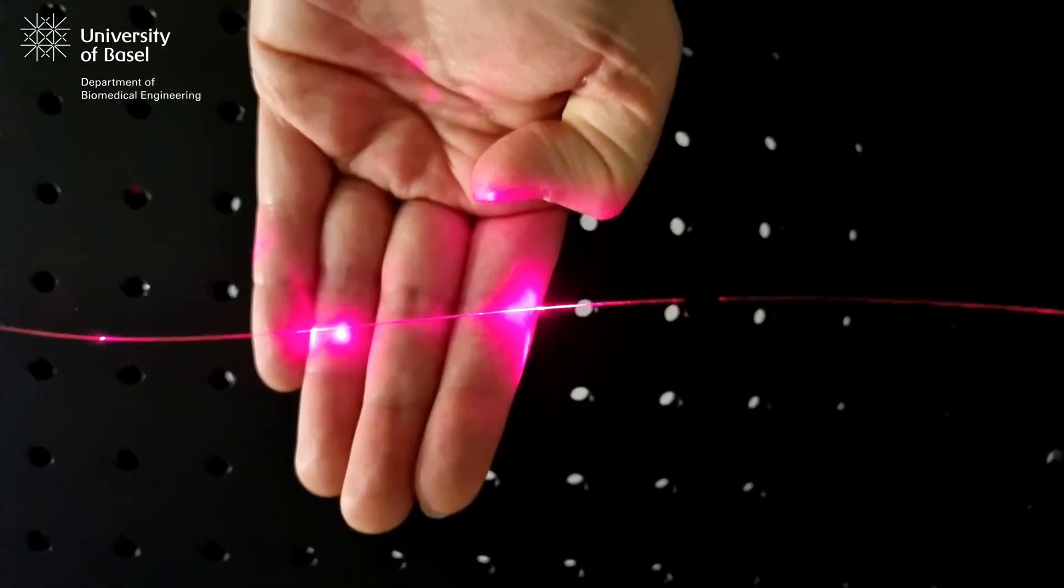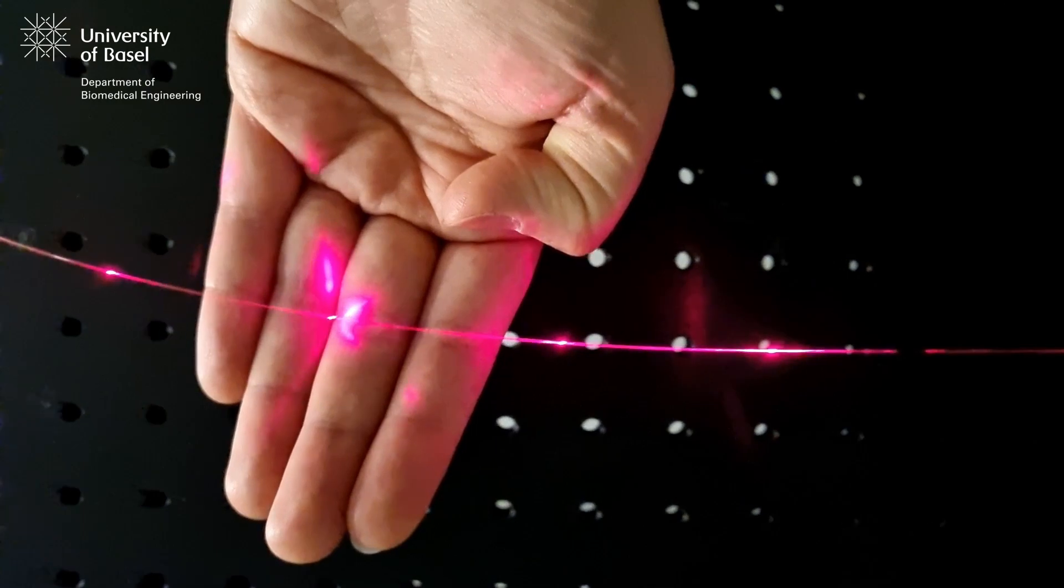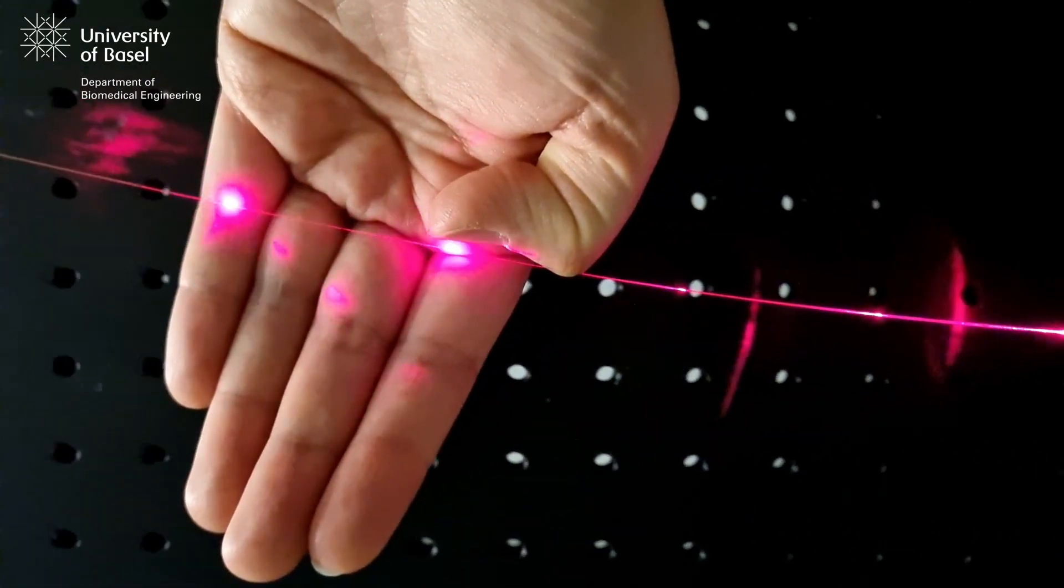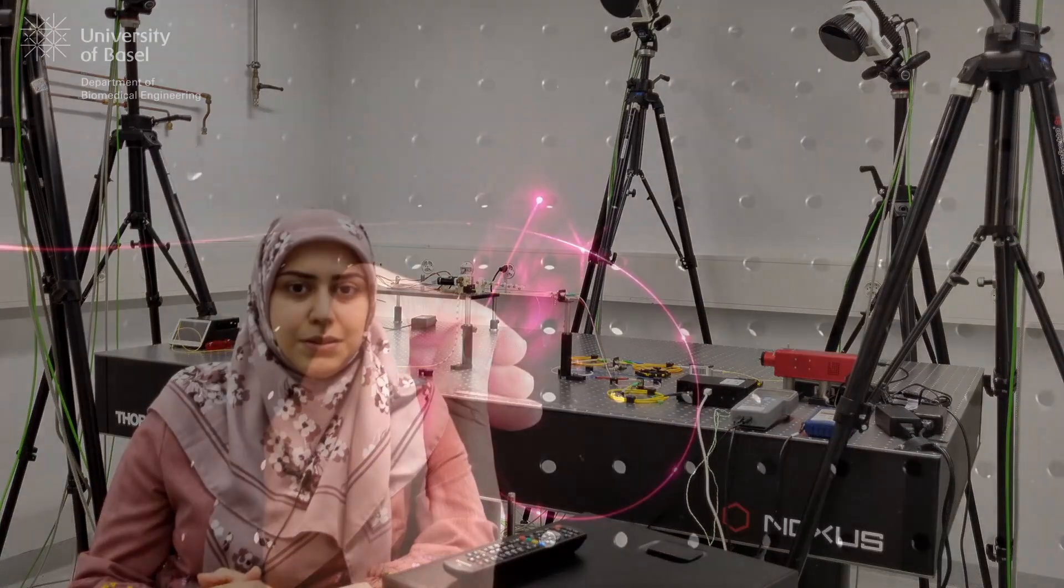The proposed model is able to predict the shape of the 30 centimeter long sensor with clinically relevant accuracies. Although there is still room for improvement, we believe that this method opens new possibilities for shape sensing applications based on low-power devices and inexpensive interrogators.